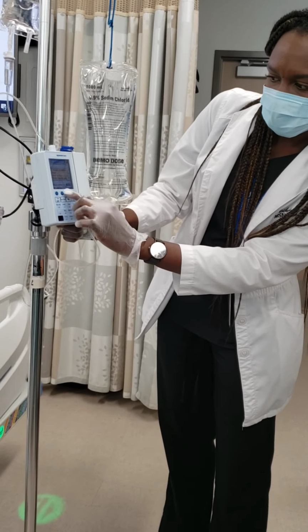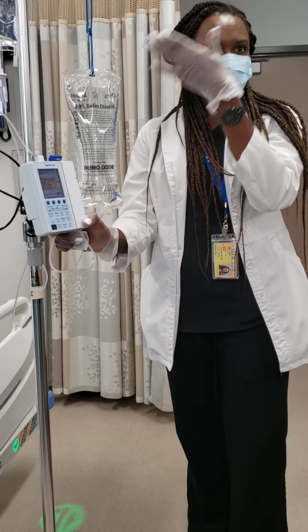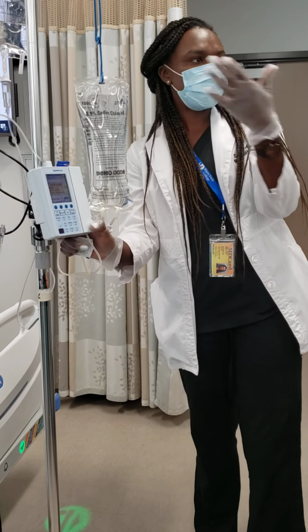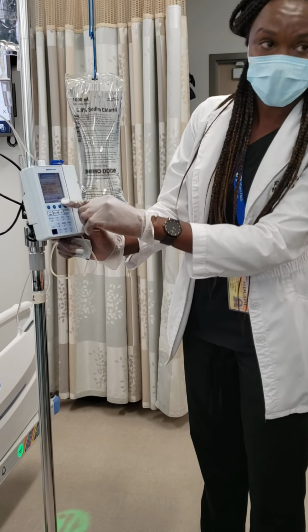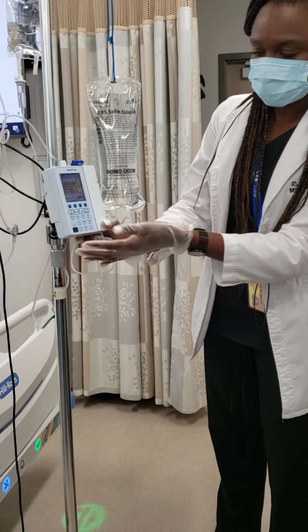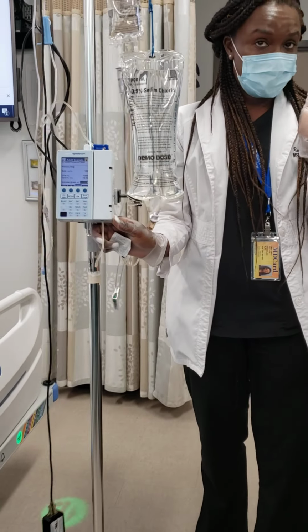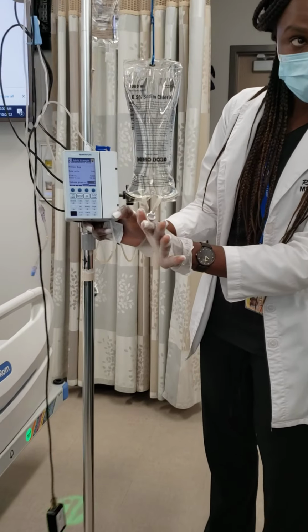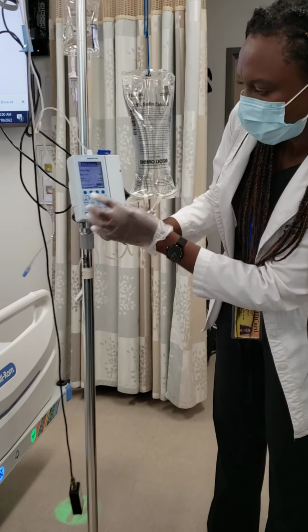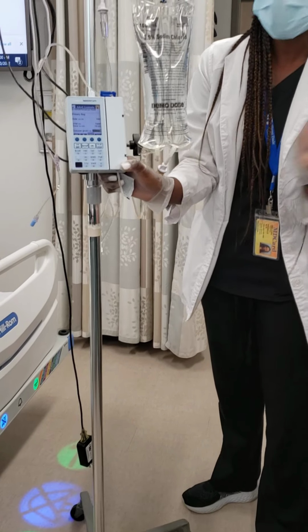It's 10 hours. Once it's infusing, it tells you as well how much is infused from the time that you hung it. So if you come back in 5 hours, you're going to see that it says 500 mLs has been given already. Okay, and since it's primed, it's ready to go, and now we can press start. But you also want to program your secondary. How do you program the secondary? You see where it says here, Program secondary? Easy. It's all there for you.